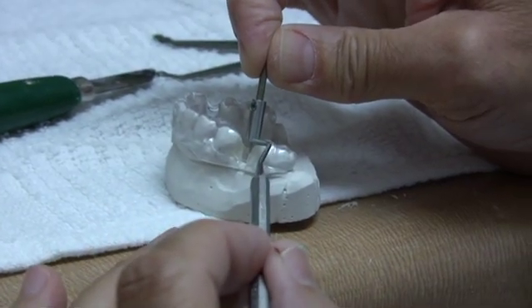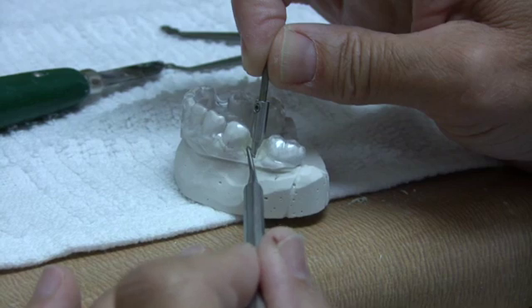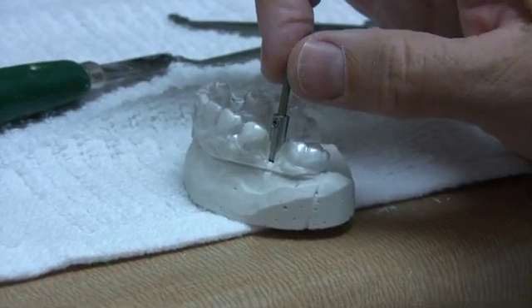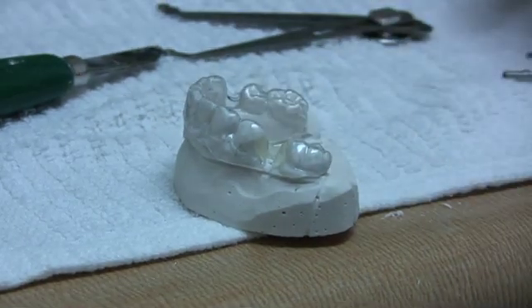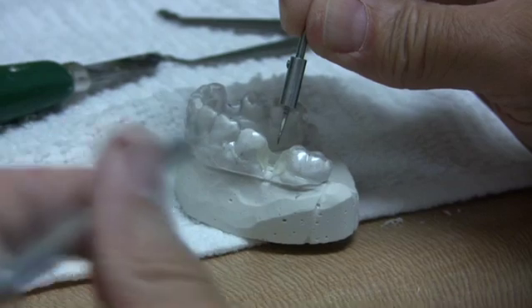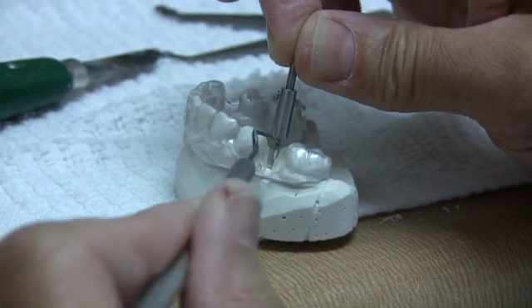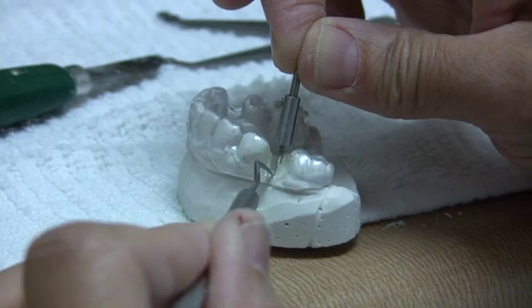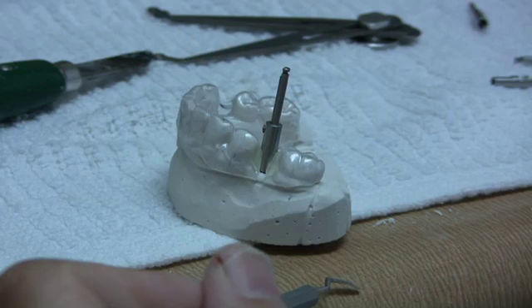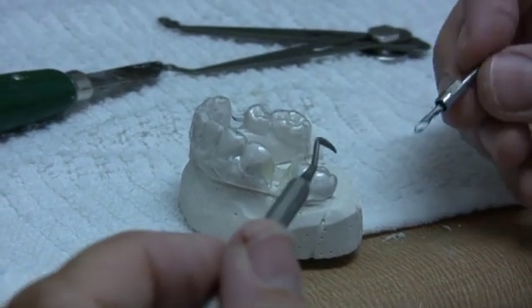It is important to understand that a portion of the drill will be cutting into the bone before the drill stop engages the guide. To aid in centering the drill and allow the drill stop to engage the guide, the osteotomy is started with a drill stop on a round burr. The drill stop is positioned on this drill to fully engage the guide just before the drill touches the bone to begin cutting. With the drill stop positioned at this level, the osteotomy will be started exactly in the center of your channel. With your next drill, you will be able to insert the tip of the drill in the opening, keeping the osteotomy centered. As you progress apically, the drill stop will line up with the guide, control your axis, and limit your depth as the stop reaches the bone.